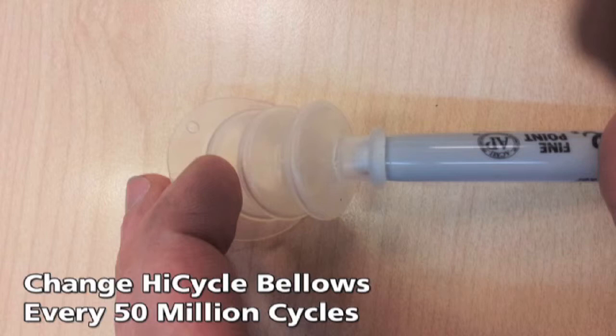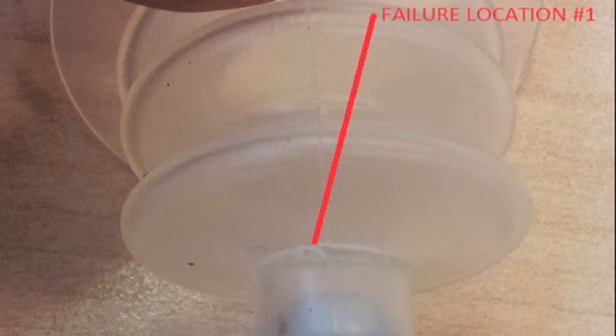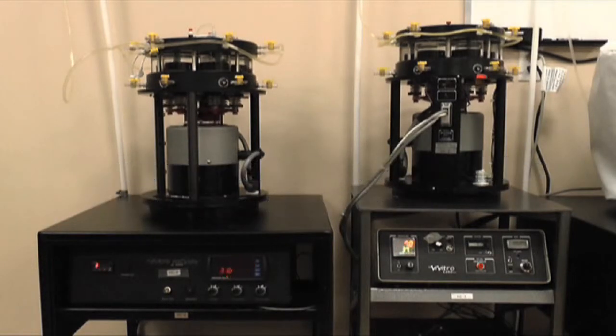When the bellows start to fail, they get tiny cracks and holes that may allow some fluid to leak out and let air get sucked into the chambers. Usually air bubbles due to bellows failure are very fine bubbles that make the fluid appear clouded. When bubbles do accumulate in the HiCycle chambers, there are a number of ways to extract them.